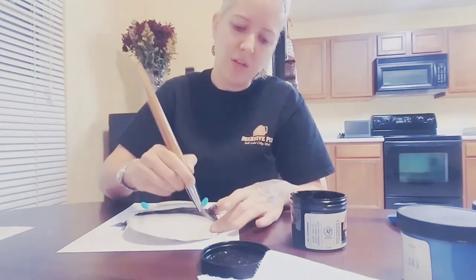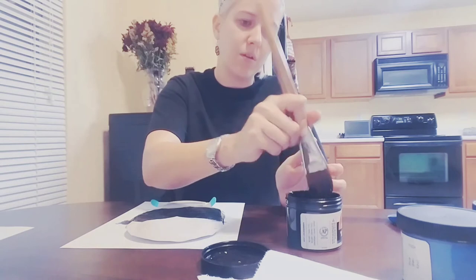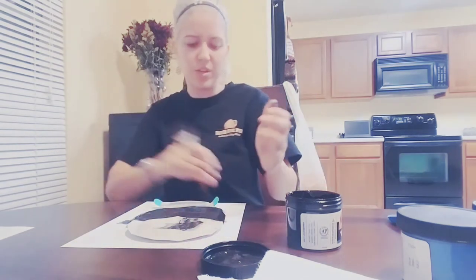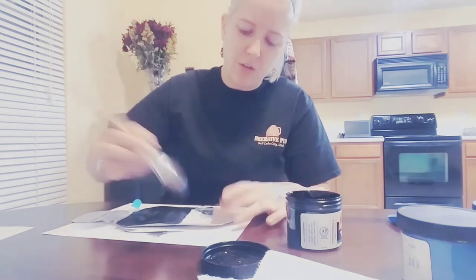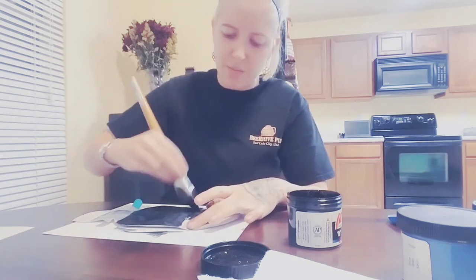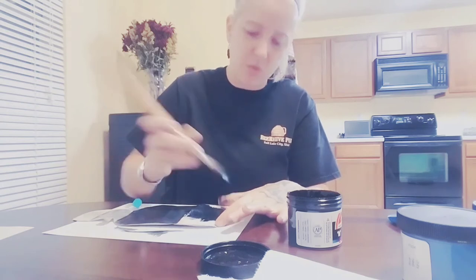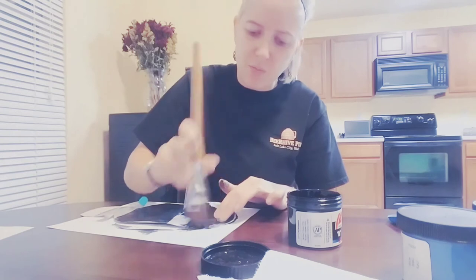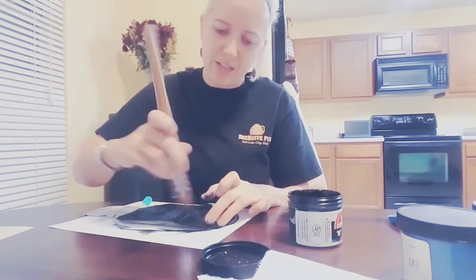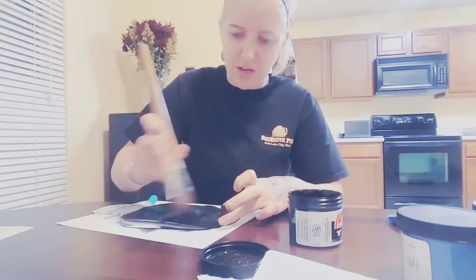It's just that easy — it takes like a minute to do a pouch. It might be something you could do whenever you get your pouches in: just do a few of them and then you'll have them all ready for your pouch changes. I really like the idea of having some designs on your pouches. I want to get behind using ostomy pouch covers, but I don't like the idea of bulk — which is essentially why I cut the filters out because I find them bulky. I like being able to decorate my pouch that I'm going to throw away without adding bulk.